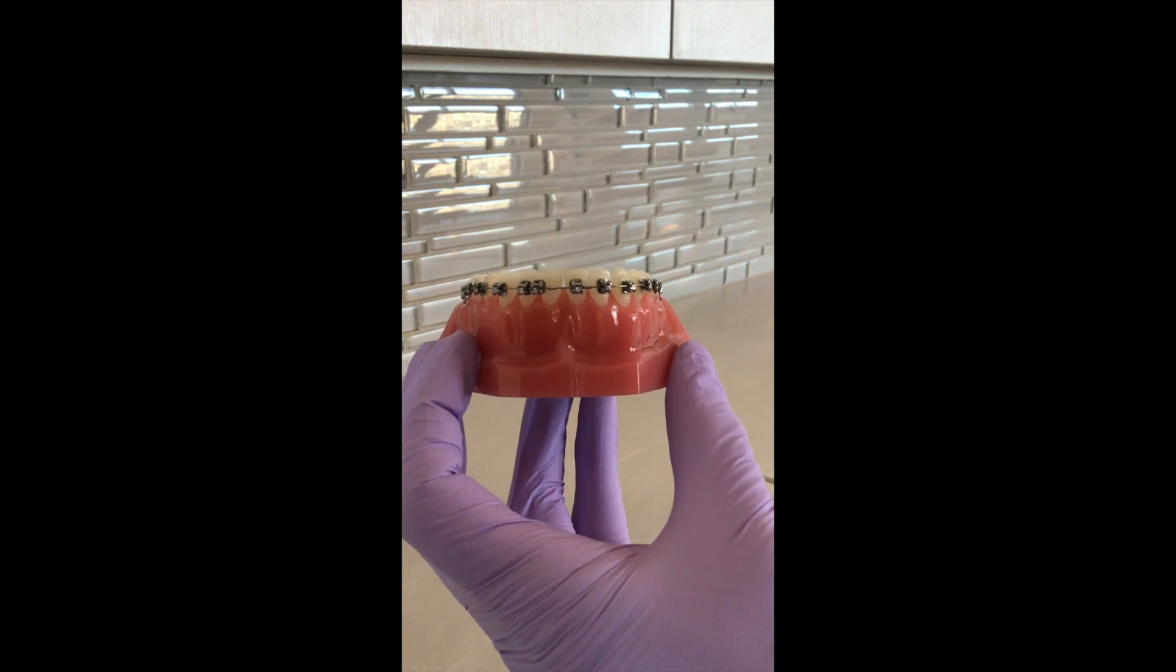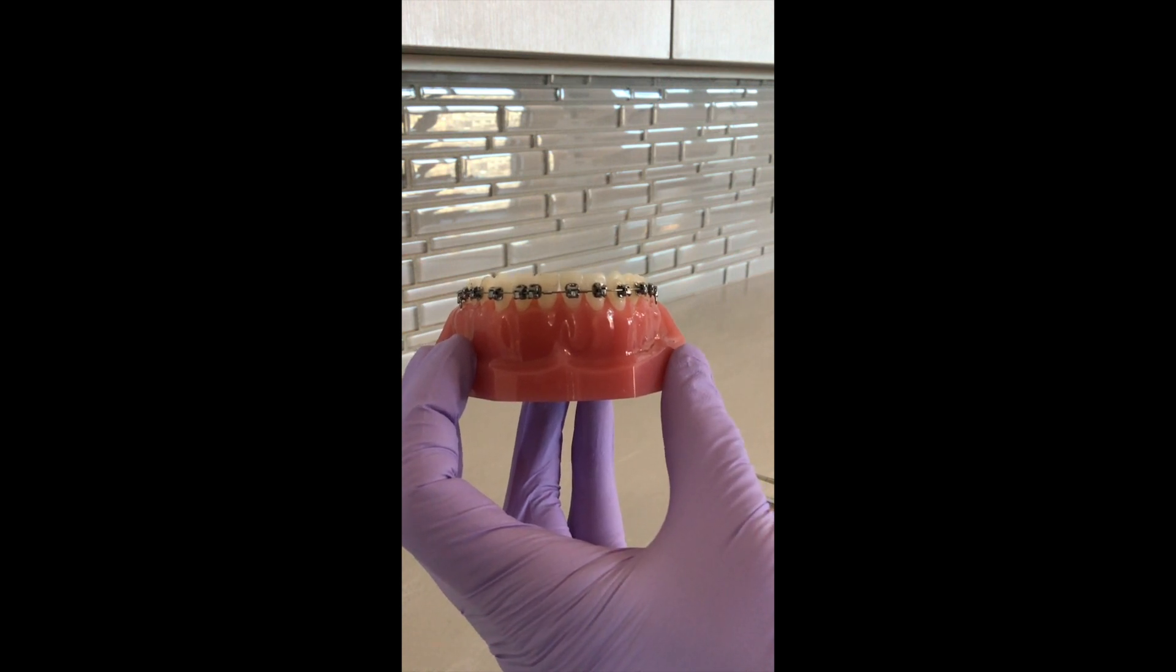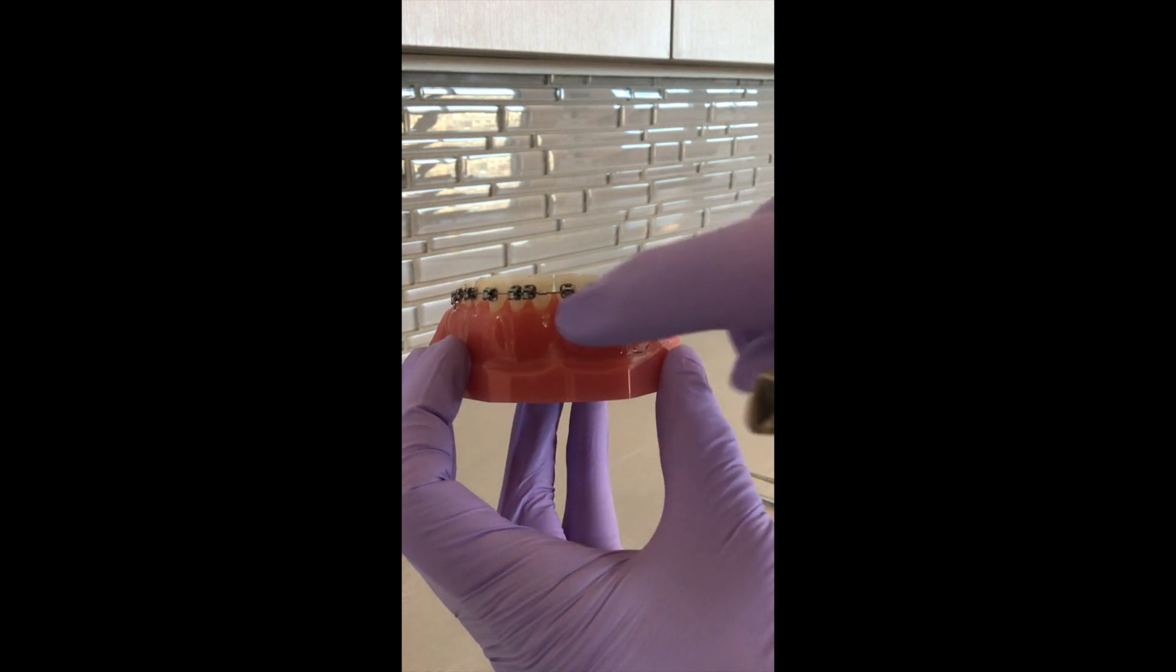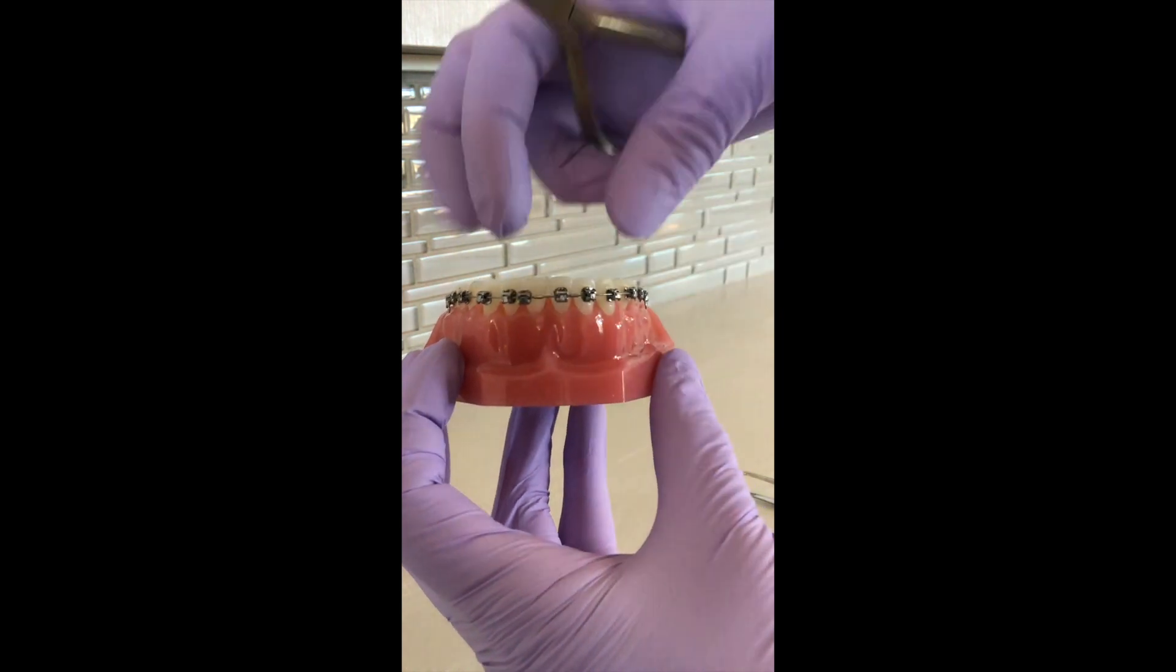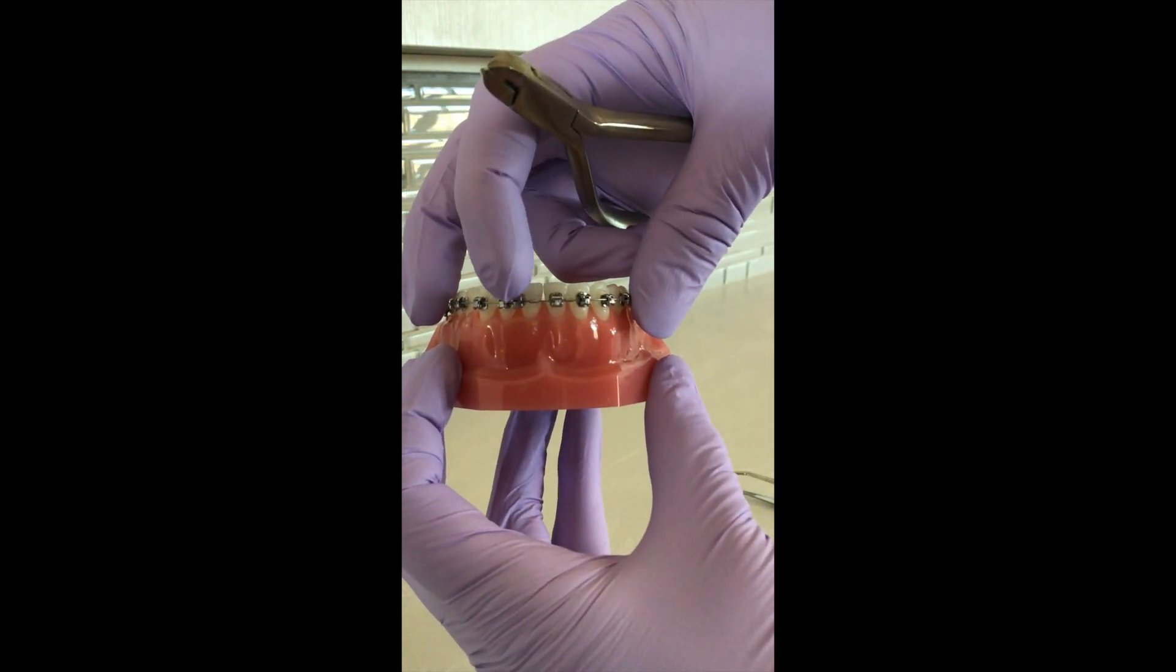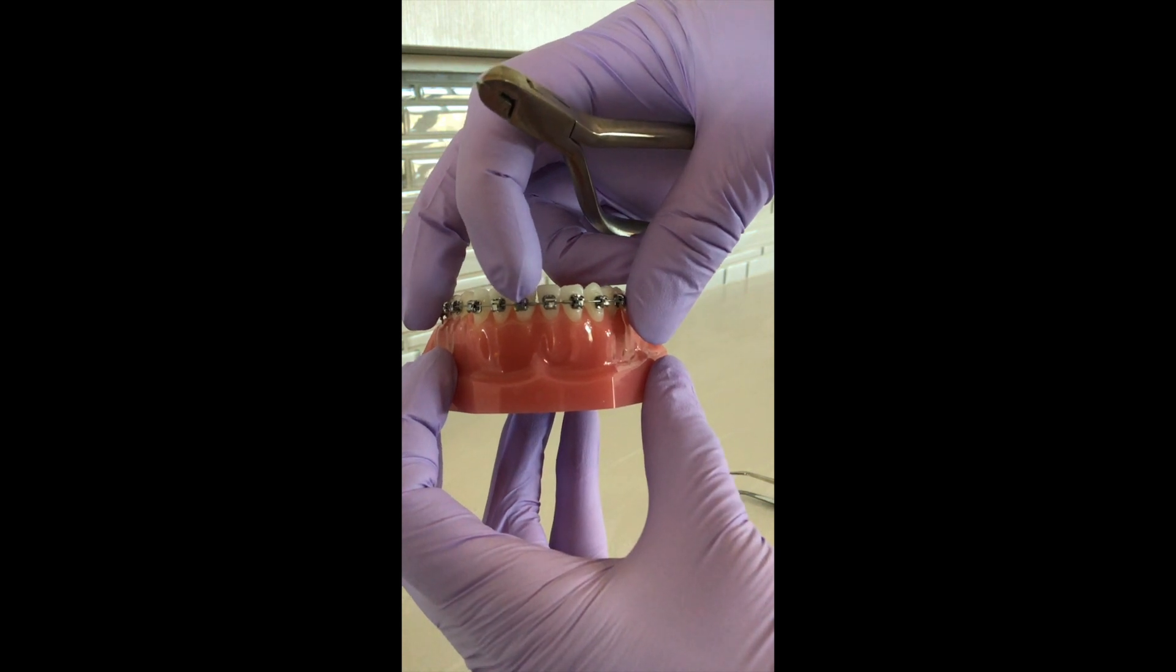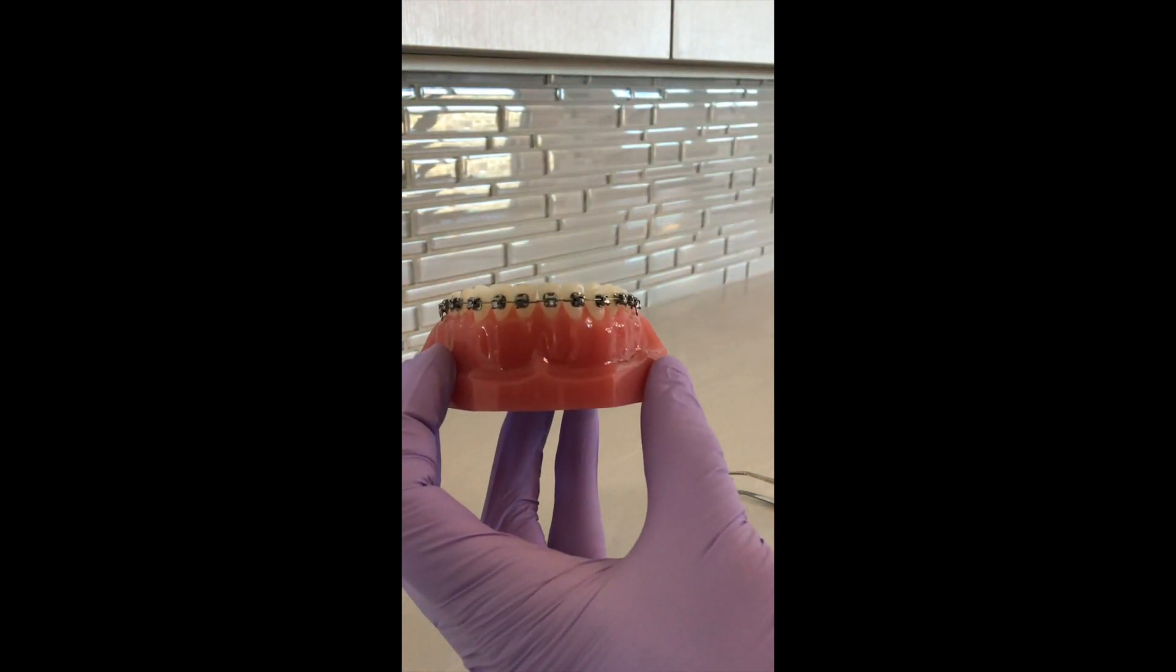I'm going to walk you through the steps of what to do if you have a broken bracket. As you can see, this one little bracket on here is kind of dangling around. This is not an emergency, usually not a problem, but I recognize that it can sometimes be a little bit irritating and annoying.